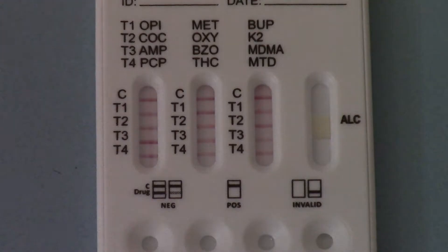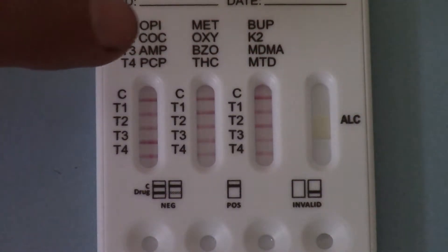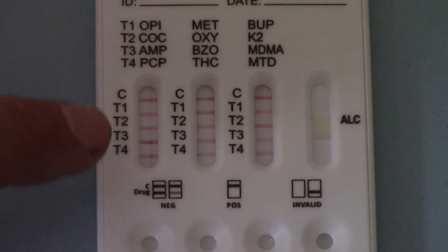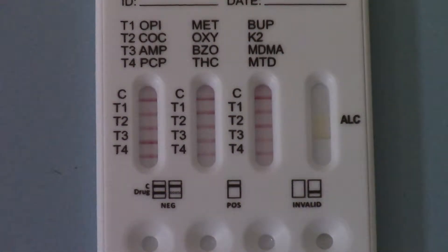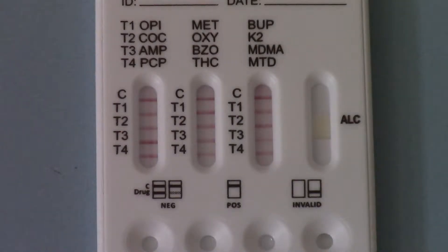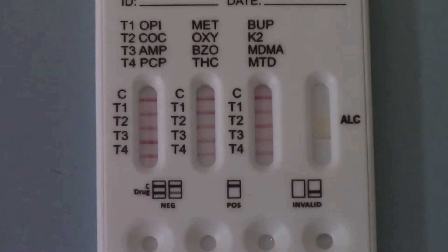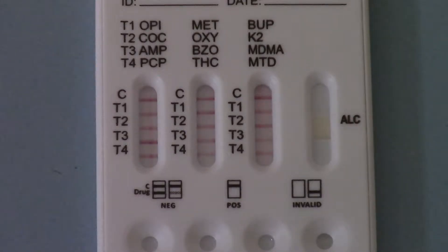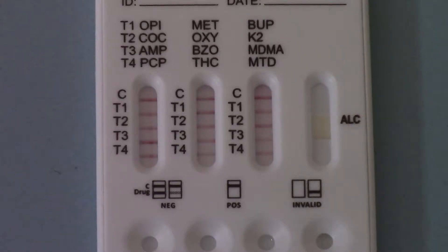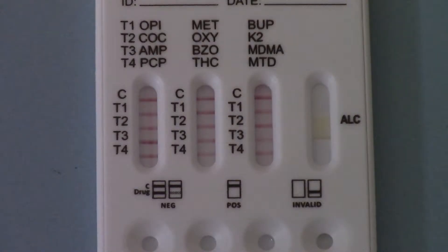You can see here we've got control lines showing in all three of the drug windows and against all abbreviations we've got some nice clear test lines showing. You will notice there's a little variation between the color density and thickness of the test lines, but any test line forming at the specified read time with the associated control line must be interpreted as a clear negative result.